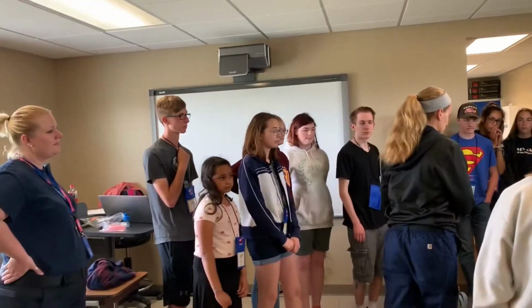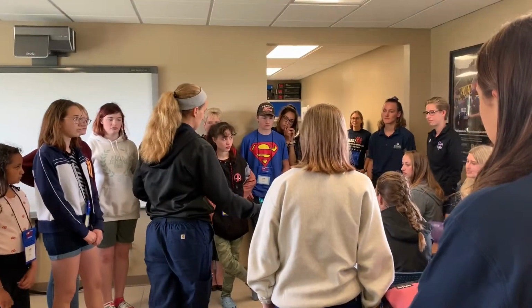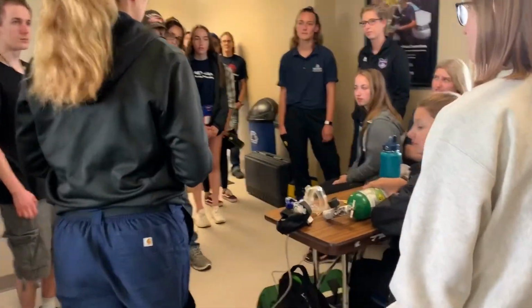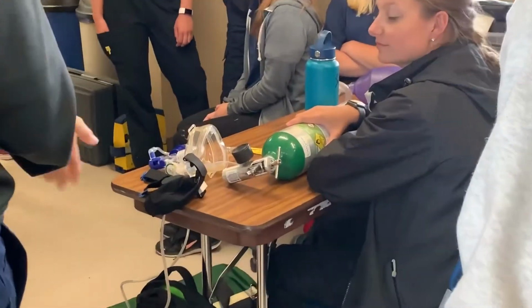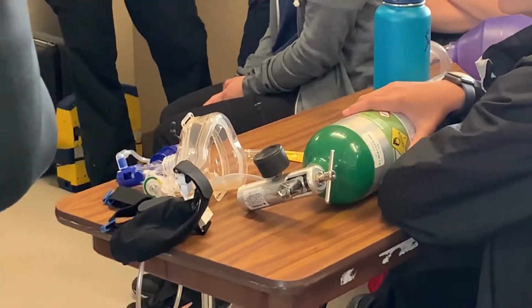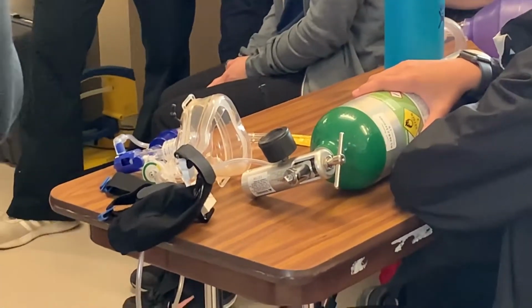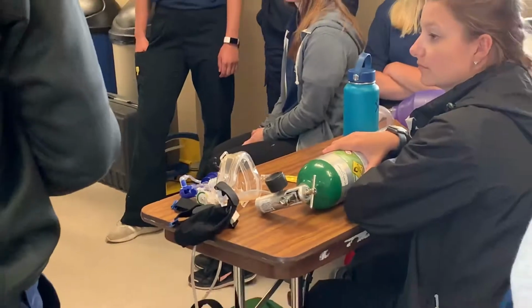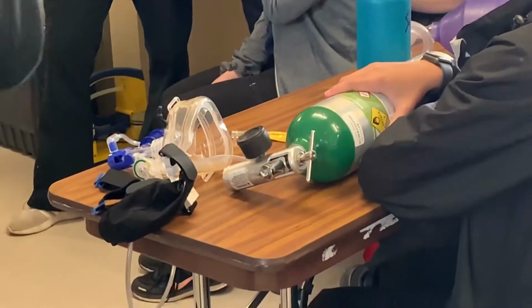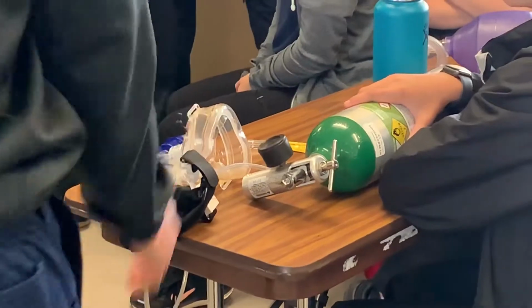So you'll take an initial set of vitals. Then when you notice that their vitals are not where you want them to be, you'll apply the C-PAP machine, and then you'll take another set of vitals within 5 minutes usually. If their pulse oximeter is rising and it looks better, you can keep the C-PAP machine going as it is until you arrive at the hospital, while checking vitals every 5 minutes to make sure they're not decompensating. If they begin to decompensate, which means their vitals are dropping, you can choose to raise the amount of oxygen being put through the C-PAP machine and check their vitals again. So it's a constant checking of vitals and changing the oxygen as needed.